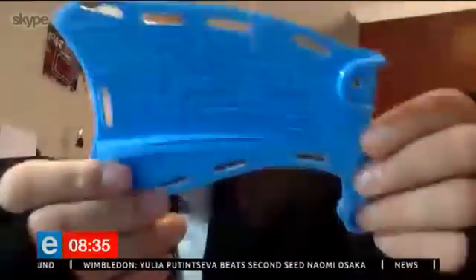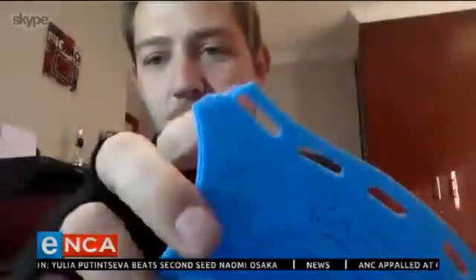From there we made a few prototypes. Here's one of the earlier prints for one of Apelele's arms. One of the tests showed us where the elbow can break. But we went through a rigorous process getting the aesthetics absolutely ready, getting the prints ready, making an awesome hand, and finally getting the working prototype to him. It was about 10 hours of printing, 2 hours of assembly, and about 4 hours of spray painting.